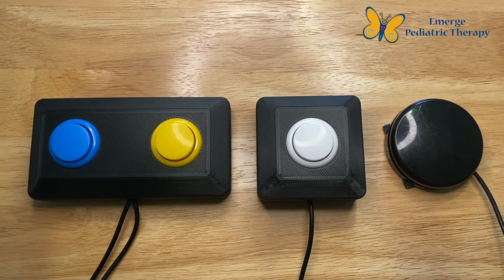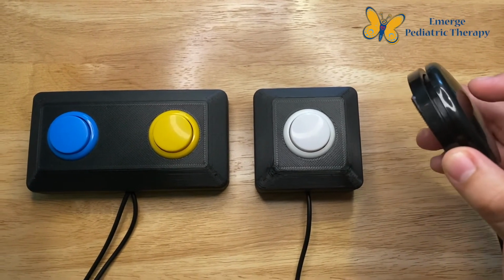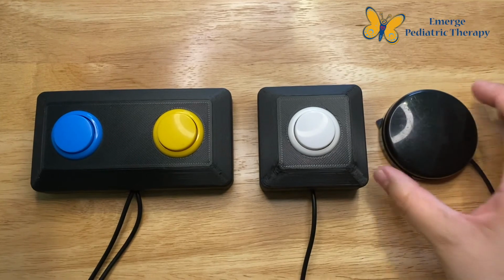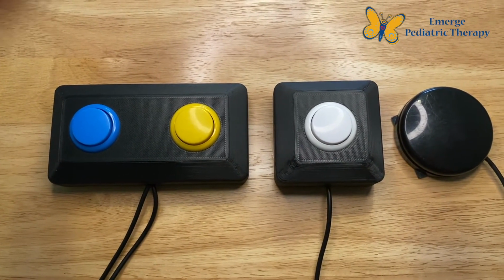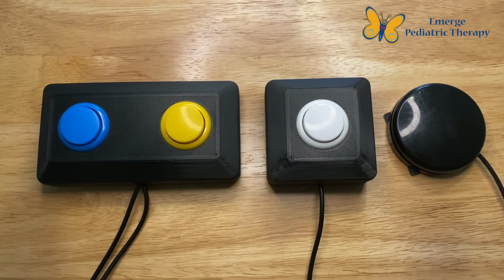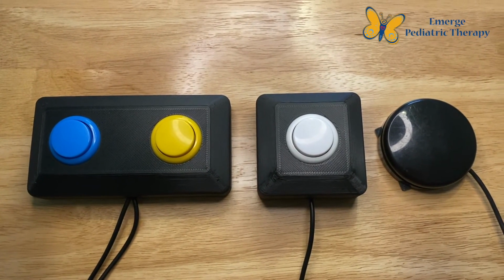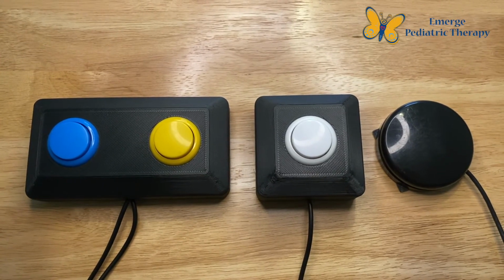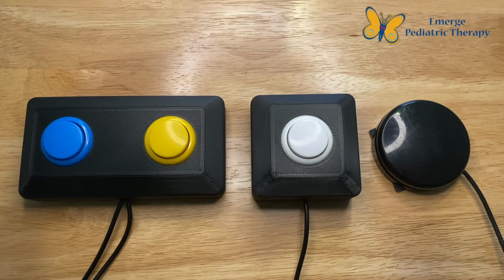Next, we'll be talking about switch access. This is a pretty typical switch. It's essentially a button that you push to activate. These ones are from Warfighter Engage. They're a company that makes switches for veterans, not just for speech generating devices, but it can be used with other things as well. I'll be showing you how to activate a device using both a single switch and two switches.